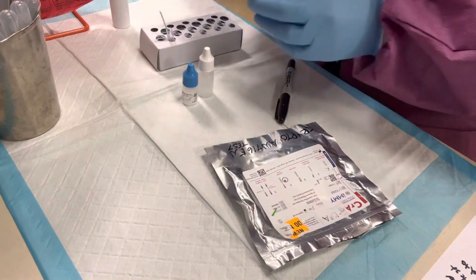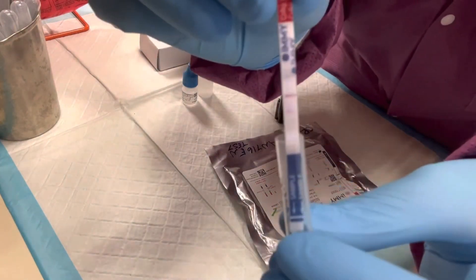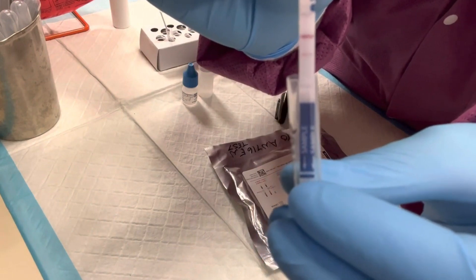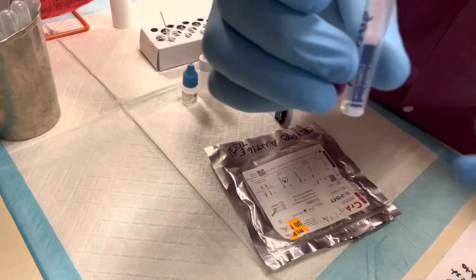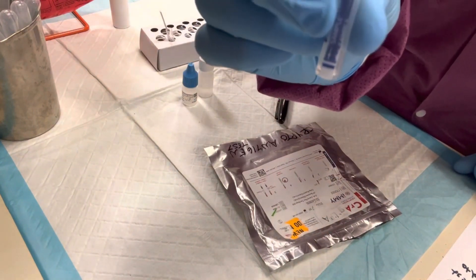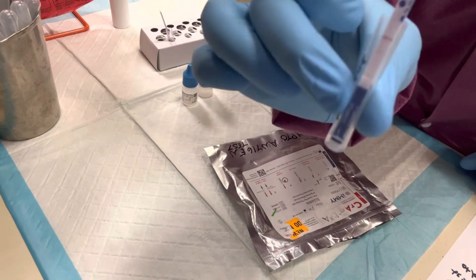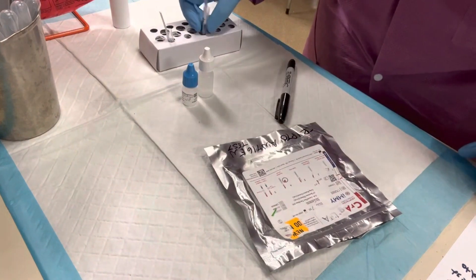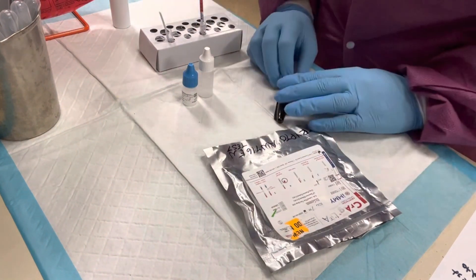Now let's take a look at our positive patient — that's beautiful. There are two lines: that top one is the control line, and the bottom one is the positive patient result. This means the patient has cryptococcal capsular polysaccharide antigens and would be positive for Cryptococcus.